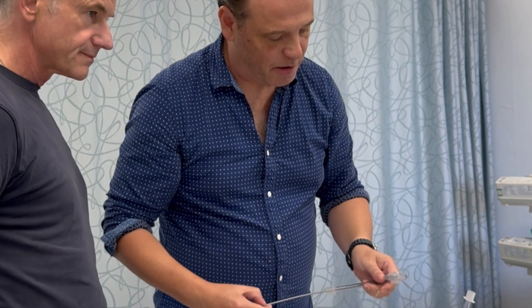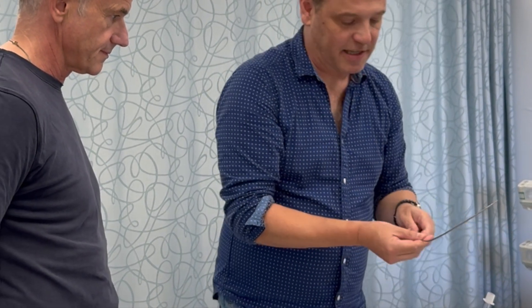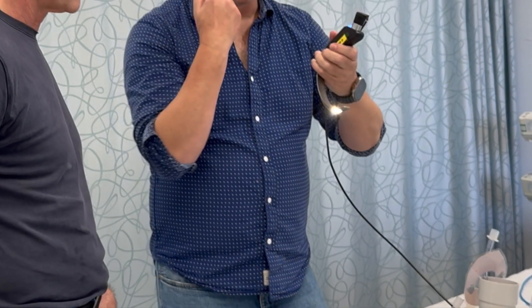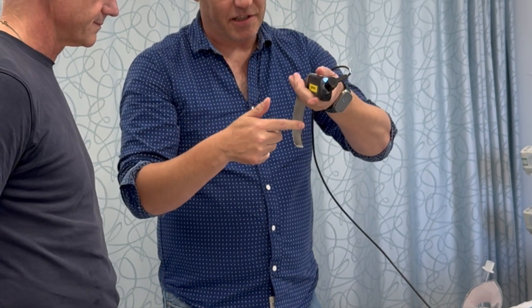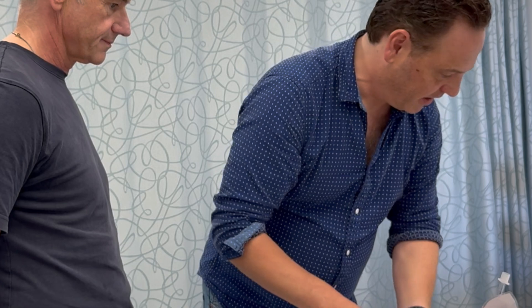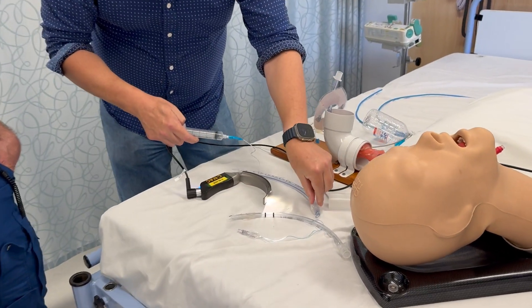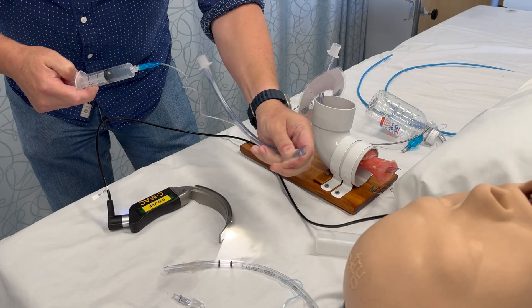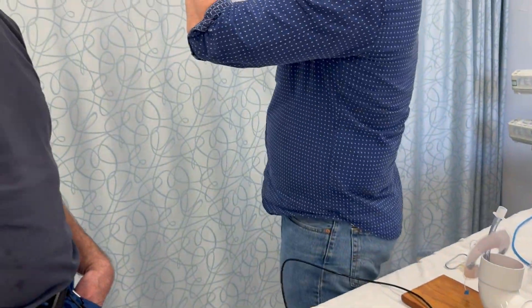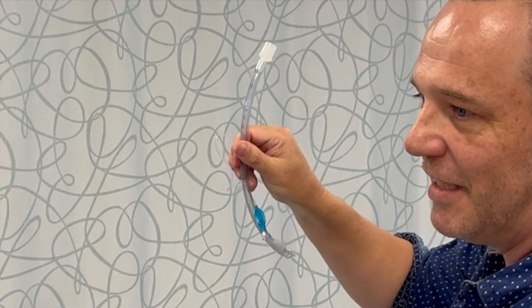In terms of preparing the tube, I like to do a couple of things. First, lubricate the stilette, and lubricate the top of the blade — because particularly if patients have been on high flow and are dry, you're not getting under the tongue where secretions still are, so it just sticks and it won't go. And the final thing I do to prepare is inflate the cuff, then grab it through the packet so I'm not manipulating it, and deflate the cuff so I put all that redundant cuff on the right side of the tube. That way the side my camera's looking down won't have that redundant cuff obstructing the view or flaring up and making everything distal to it dark.